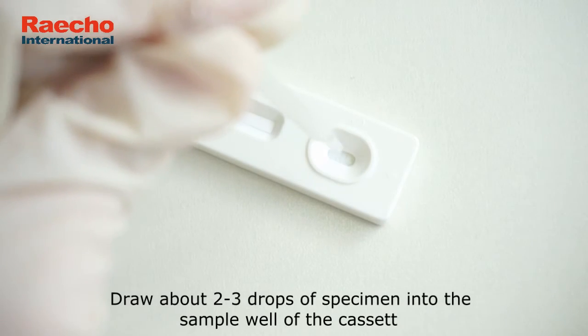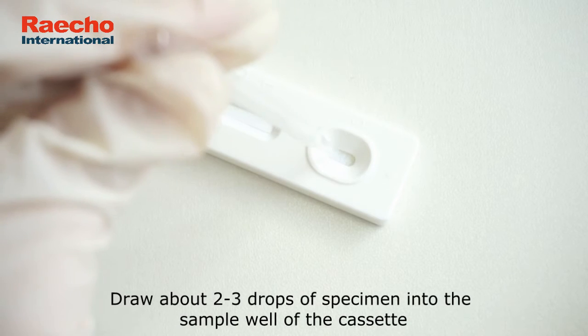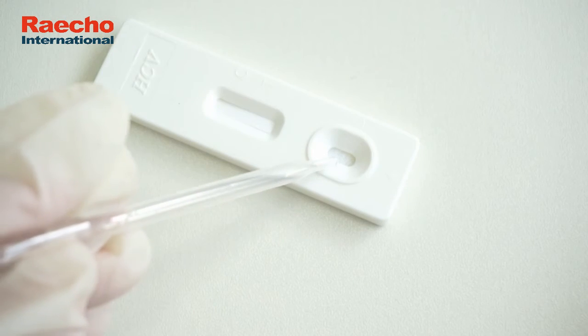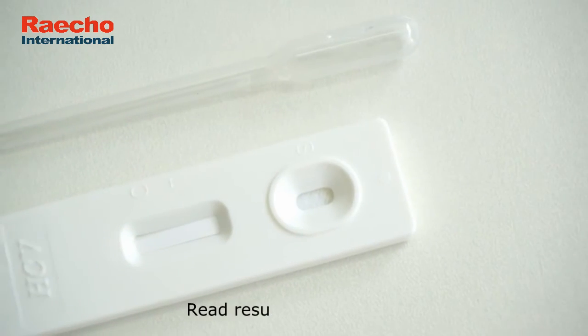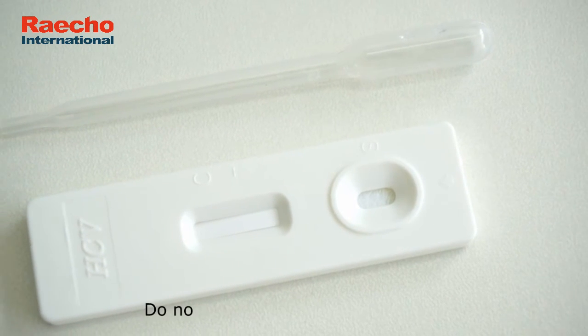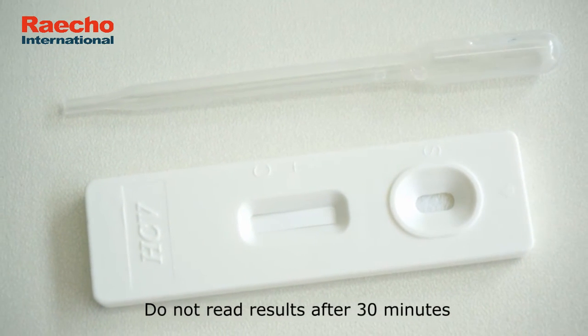Draw about 2 to 3 drops of specimen into the sample well of the cassette. Read results at 15 minutes; do not read results after 30 minutes.